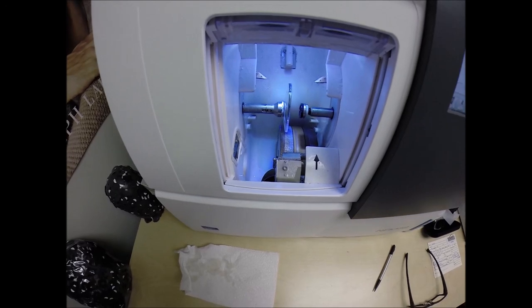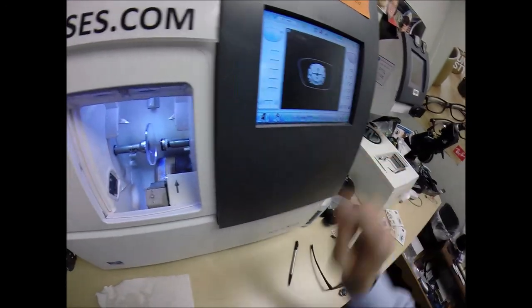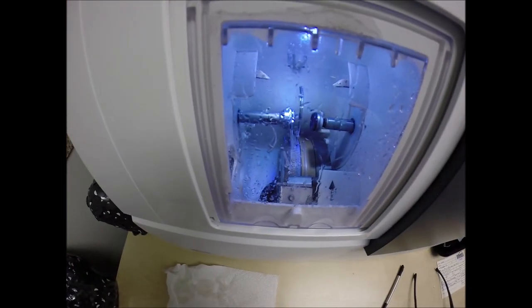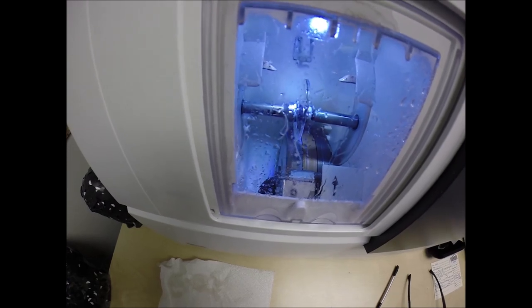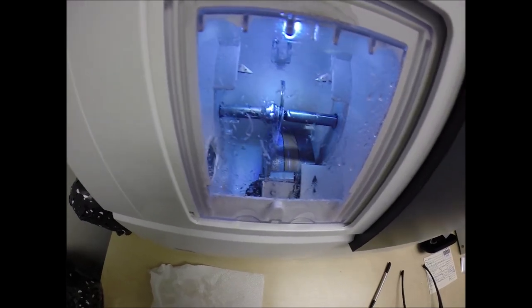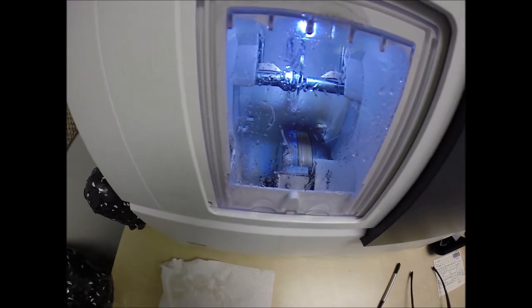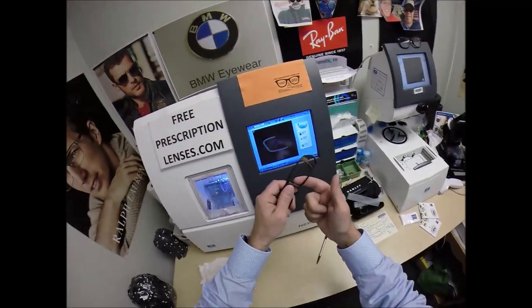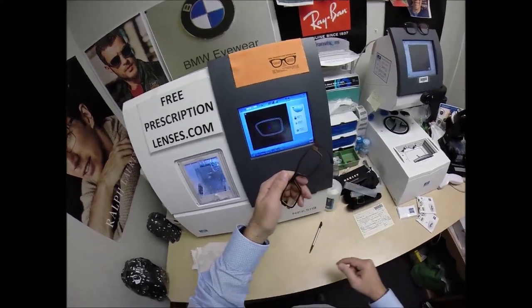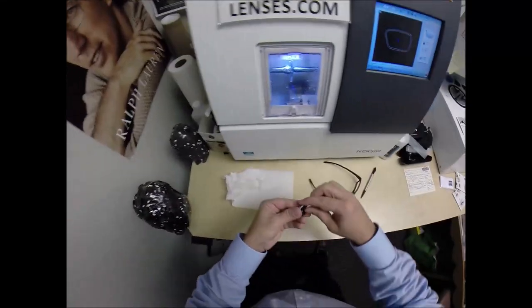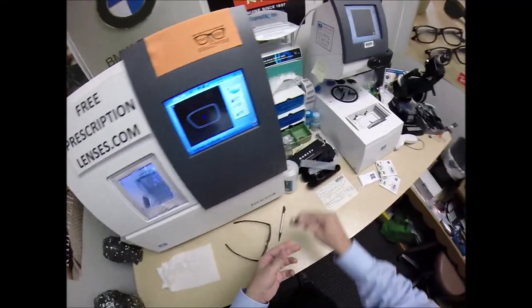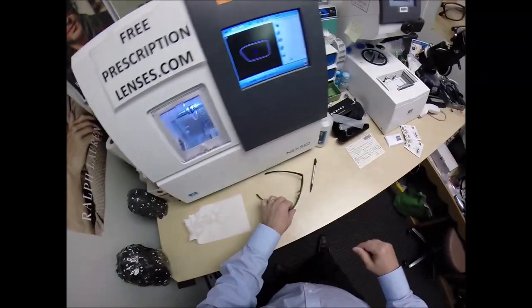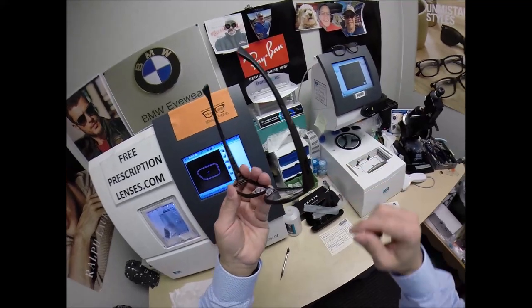We can, hey come back here lens. Flip this over to L. Place the magnet into the chuck, the Charles, the Chucky Baby, or today I'm calling it the Jesus. Hit the green start button, the door closes, the clamp shuts. The lens, again, will be traced by the two white styluses, making sure that it's large enough to fit into the frame. And you can see this is tracing the shape of the left lens. And then this fell off, add to my sticker collection. Throw that back. Come here sticker, come here sticker. But yeah, you have no edge thickness whatsoever.